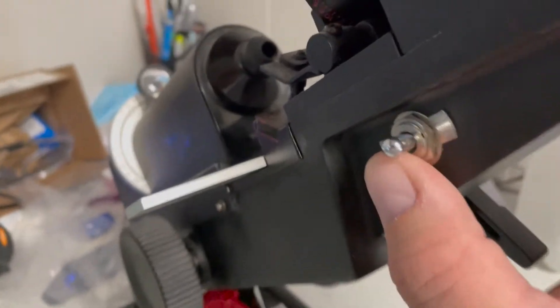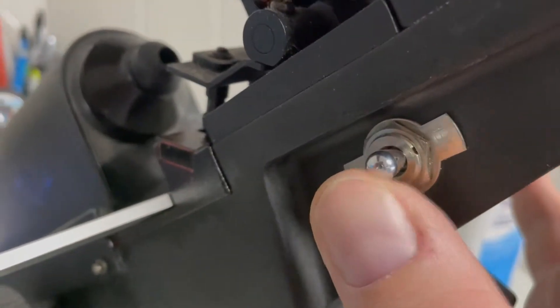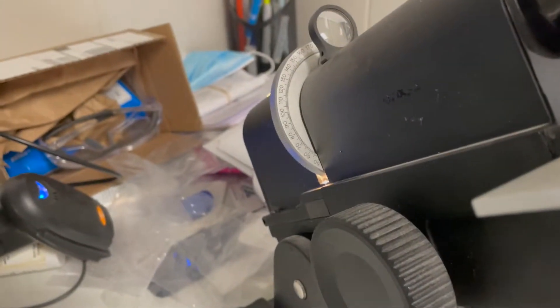Okay this is your on and off switch right here. Up is off, down is on and you can see up top that it's on.